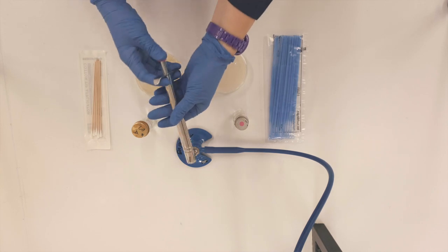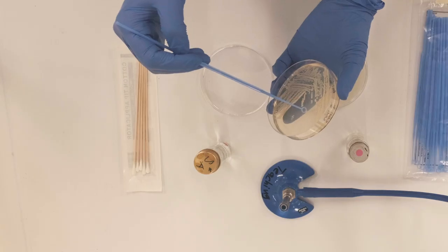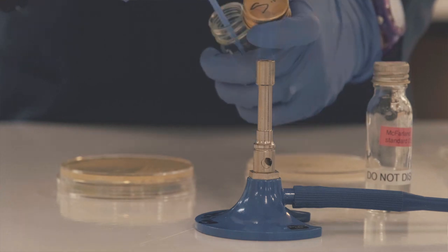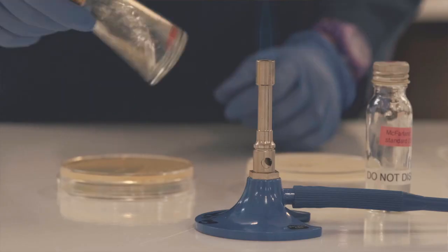When it comes to measuring antibiotic resistance, standardization is the key. The same protocols must be used across the globe so resistance can be reliably detected over and over again. Having first isolated the microbe on an agar plate, we suspend two to three bacterial colonies in sterile saline.